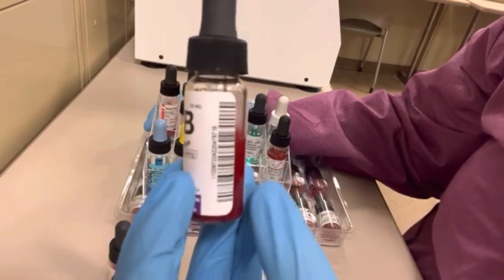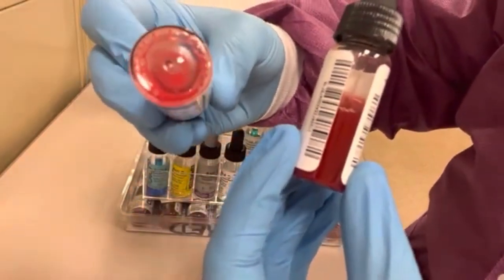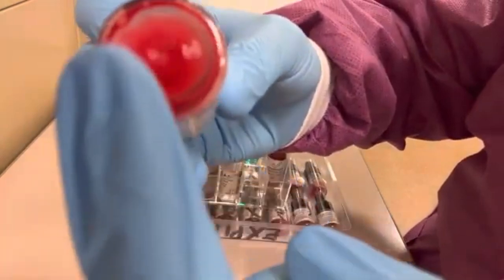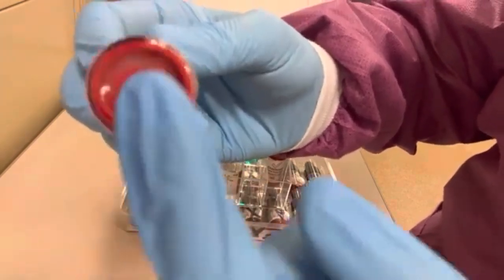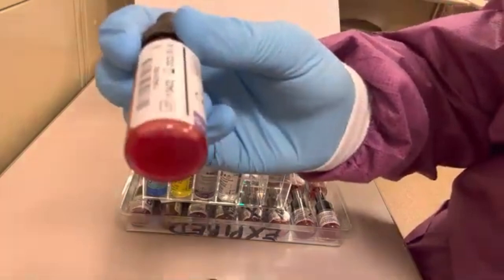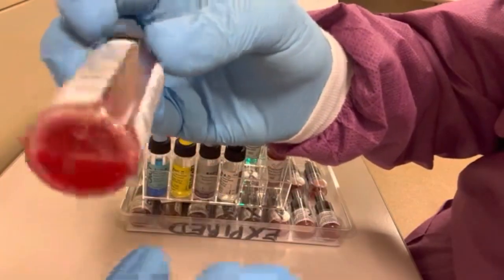One important note about any blood bank reagent that uses red blood cells: you want to make sure they are properly mixed. You can see there are red blood cells settled on the bottom of this vial, so you need to invert it to fully mix them before use. You want to gently invert — not shake vigorously — because that causes bubbles and can lyse the cells. Just gently get those red blood cells off the bottom of the reagent vial.